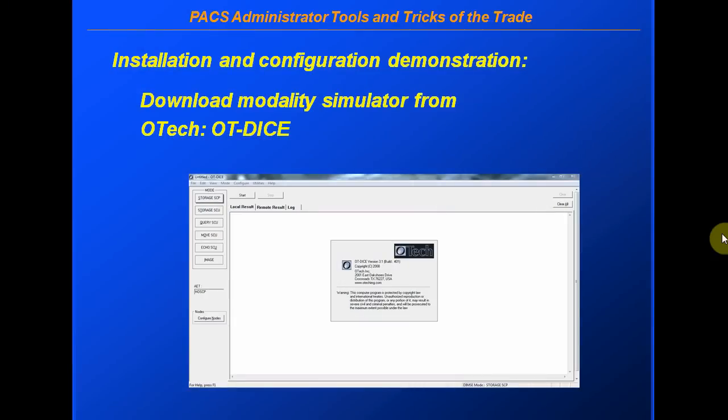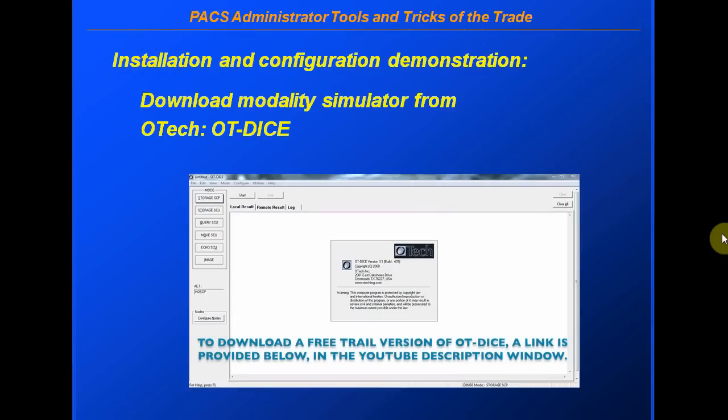Now let's get started. We need to download the modality simulator from OT-DICE and look at the different configuration parameters.